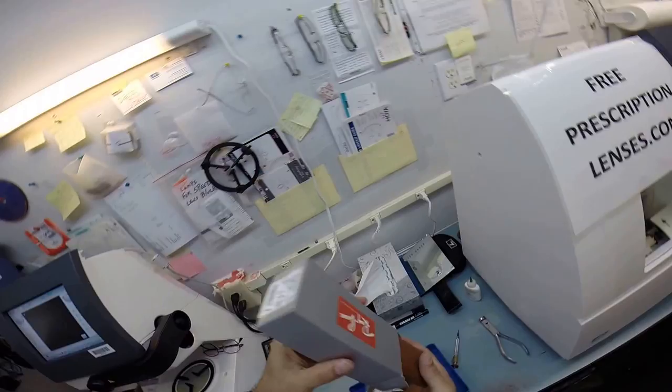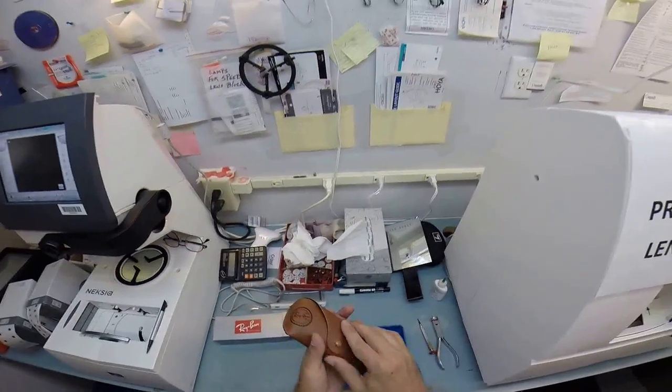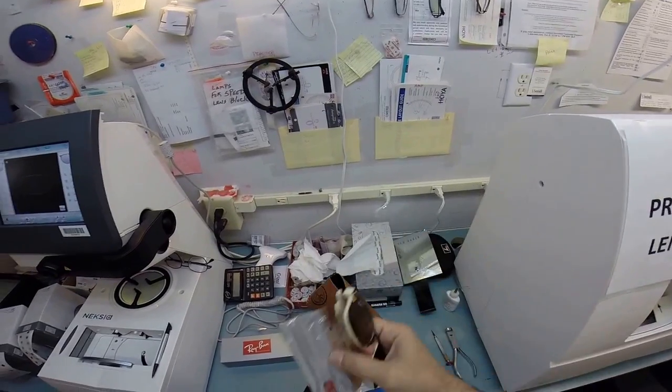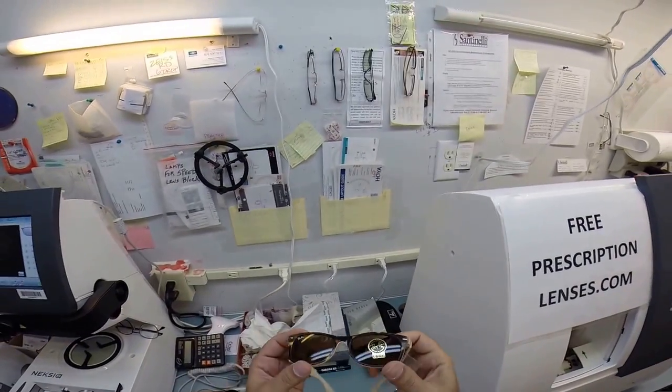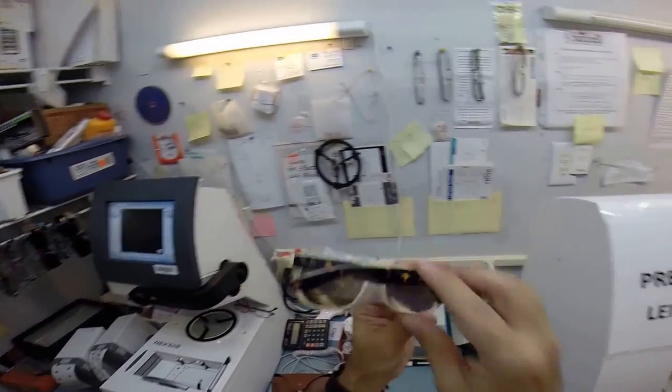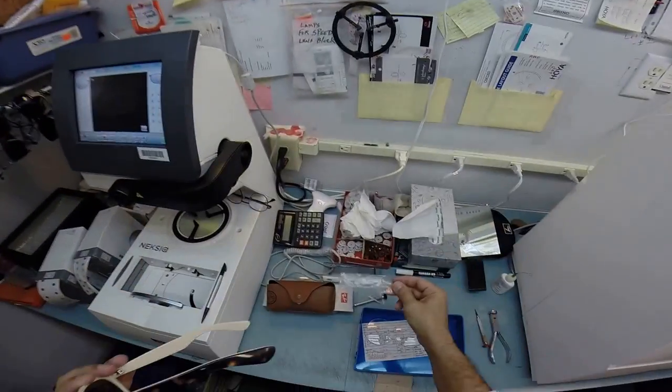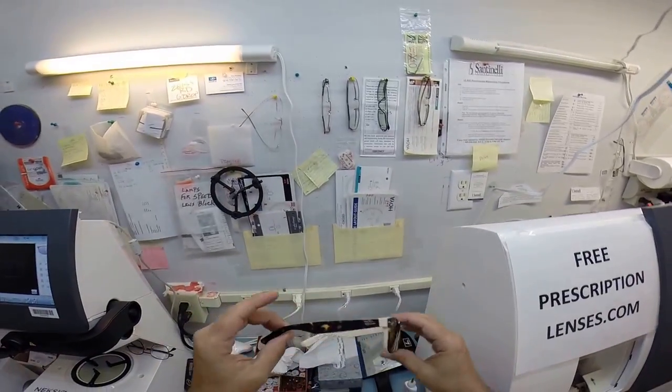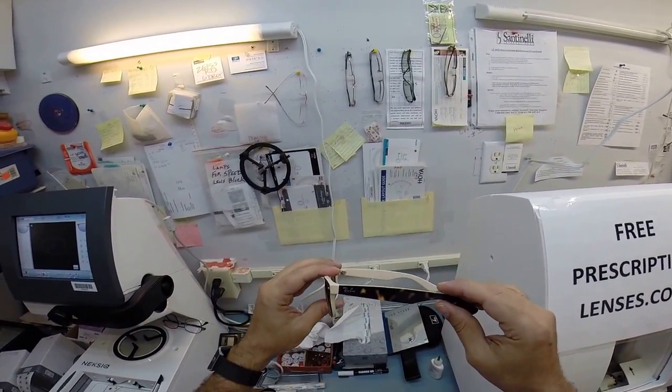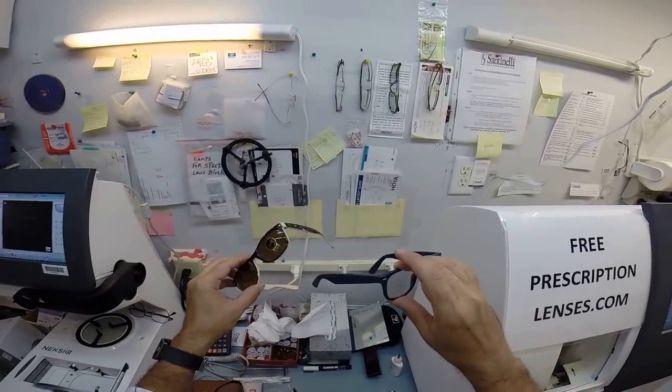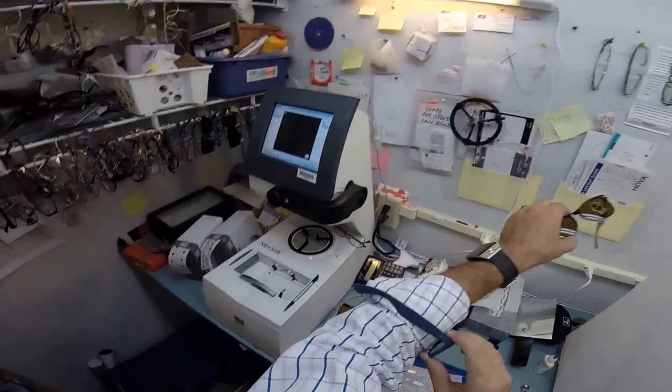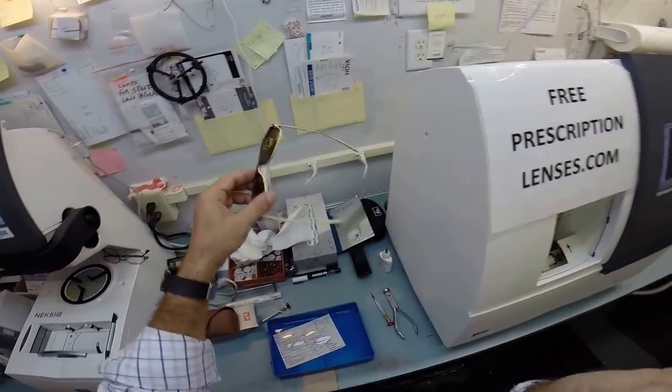So let me take everything out of the original packaging as Ray-Ban sends it to me. Your Italian leather Ray-Ban case, your Ray-Ban cleaning cloth and your Ray-Ban frame. Comes a little plastic sleeve on the left temple to prevent the temples from rubbing together during shipping and of course you will receive all the original manufacturer's packaging. But this is the tortoise beige. I actually wear this color a lot. I'm wearing the same frame in a smaller size in the blue rubber which is 811 to match my blue shirt that I got on today.